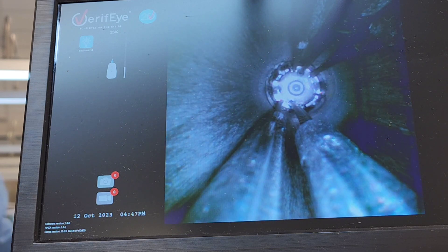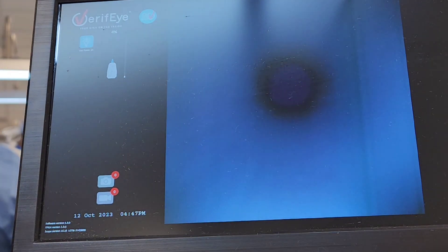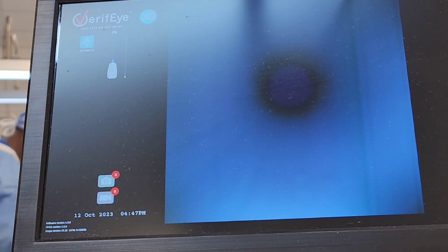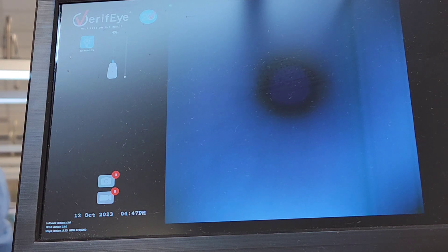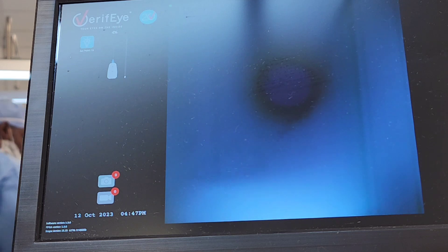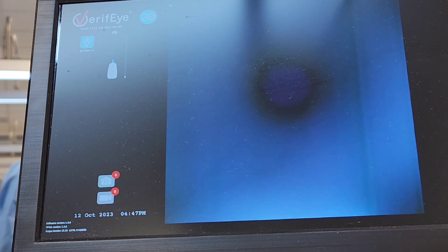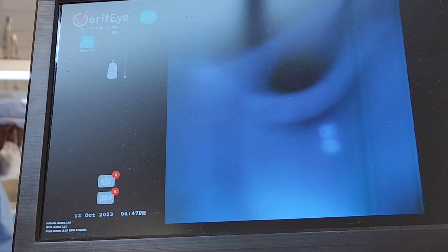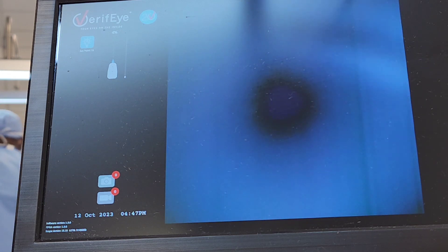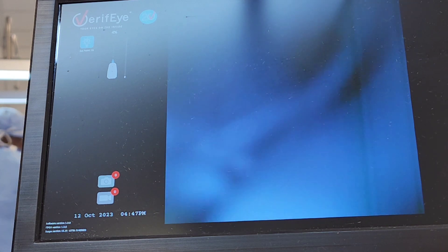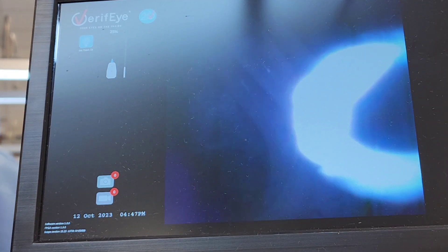We did a very good cleaning and decontamination with manual cleaning and ultrasonic. We're pulling the boroscope out - we saw no damages, we saw no bioburden in here. A little bit of moisture, but again, something I'm not very concerned about. I'm okay with this little bit of moisture; it's not going to affect anything in my processes here.